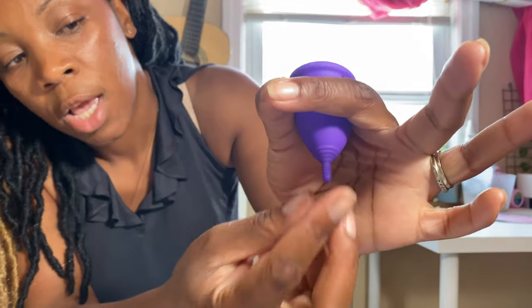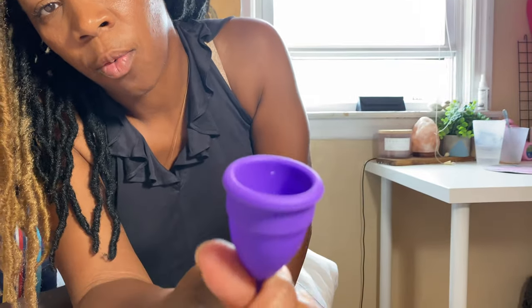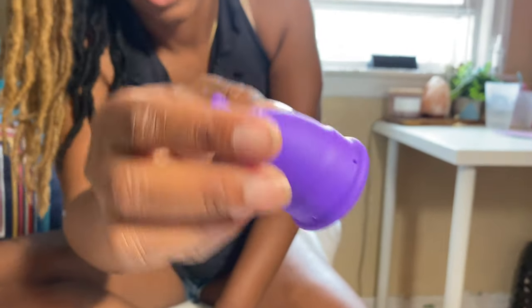So how to get your menstrual cup out. Because we're moving throughout the whole day and we are active — the menstrual cup allows us to be active, running, swimming, and doing all that — sometimes it goes a little bit up and you can't always feel it from the outside. So you push down like you're taking a poop, this bottom part will release, you squeeze the cup at the bottom using your fingers, and you rotate it slowly out. It will have all the content, you dump it in the toilet, and then rinse it with warm water and you can reinsert.